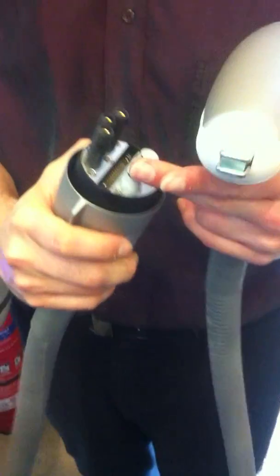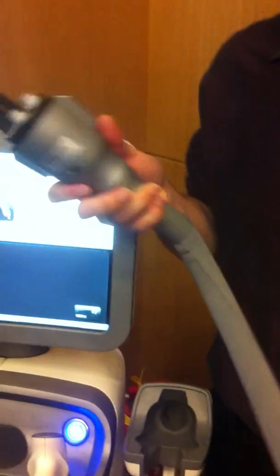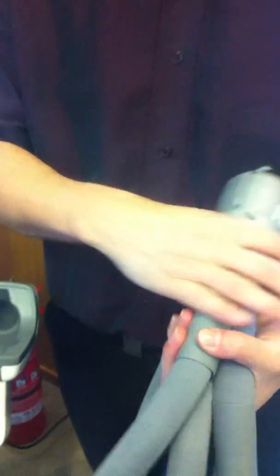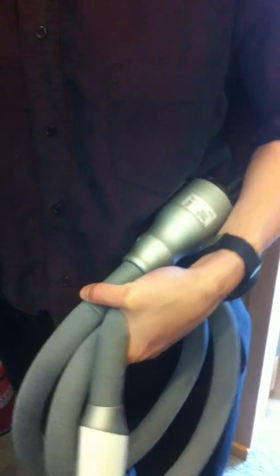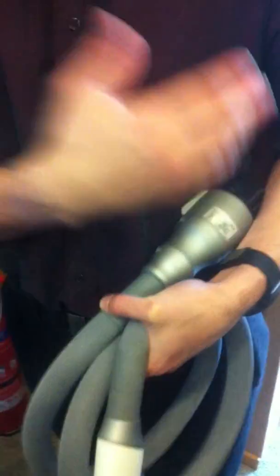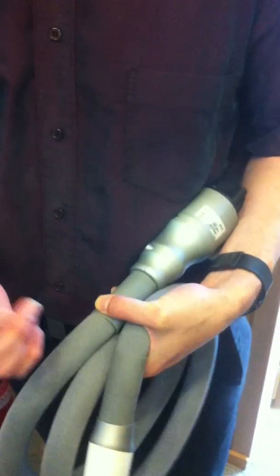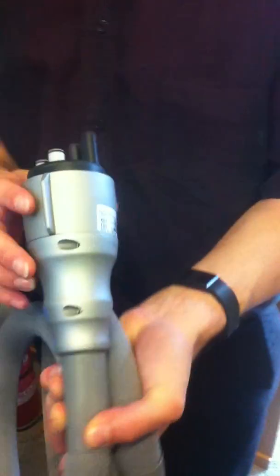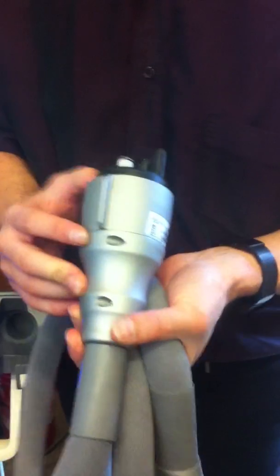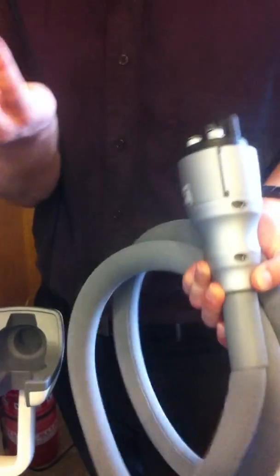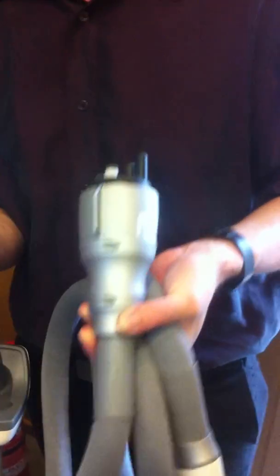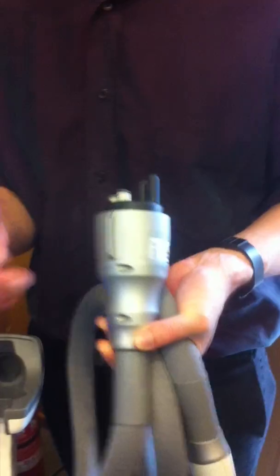There have been issues, and I'm sure the service department will know about the issues with the lock-in mechanism in the old one, so we chose to fix it with this device. Also, there will be new applicators on this device. These are not the applicators that will be available a year from now, two years from now. We will continually do new applicators for the machine. So this is just the launch configuration, and we will continue to do new applicators, just as we did with the Galaxy and the Emax and everything before.